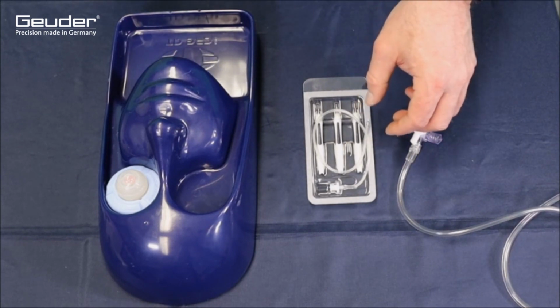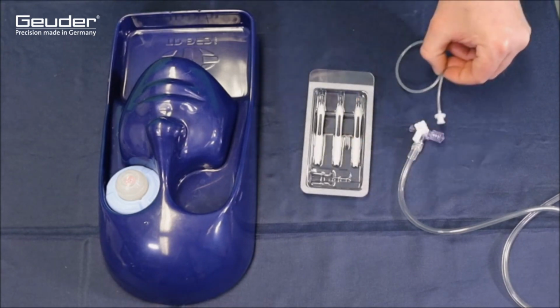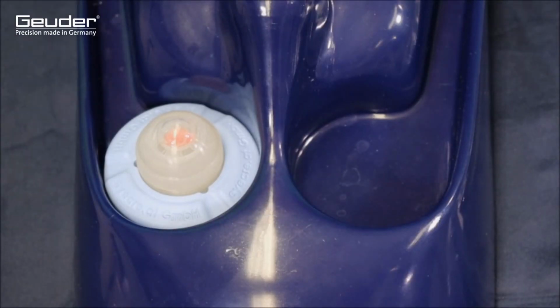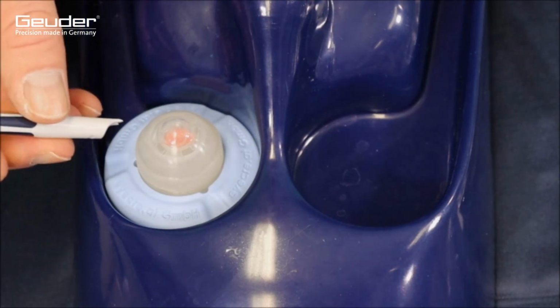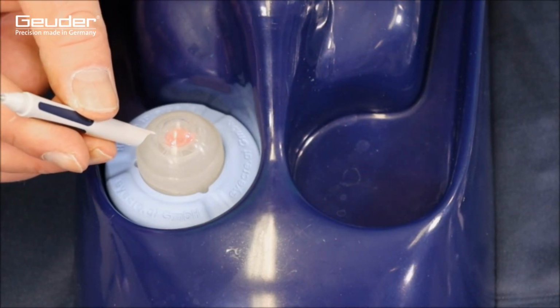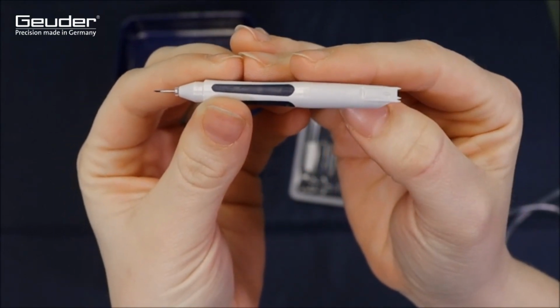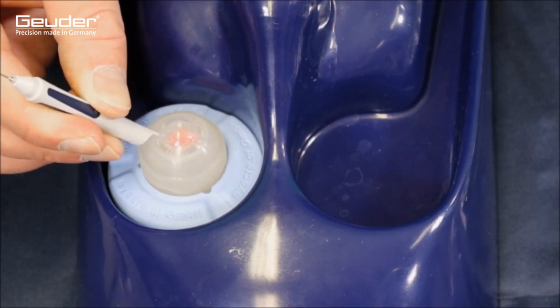Right next to the trocar set with injection holder, the three-way valve of the air injection set can already be seen. The measurement markings on the trocar lance are used to locate the position of the sclerotomy appropriately and to ensure correct insertion of the trocars into the pars plana.